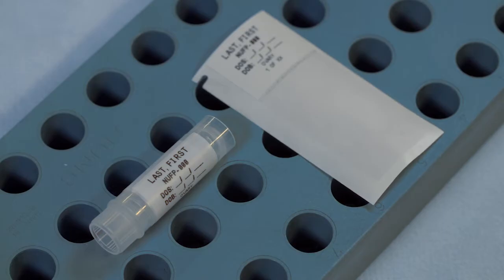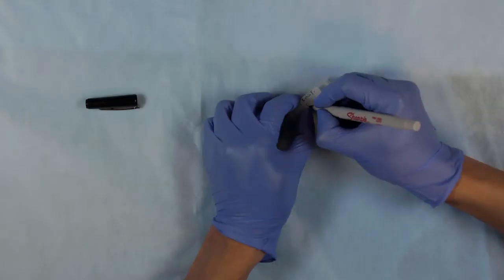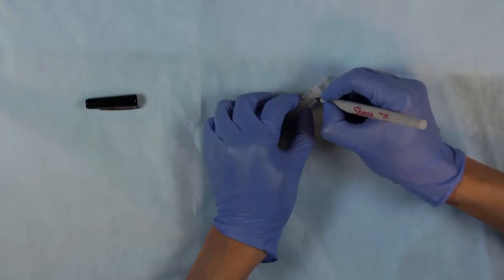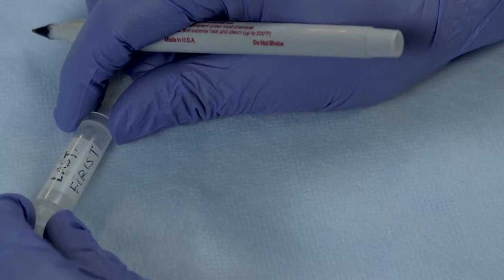Please refer to the labeling protocol in the online NPC manual. We also recommend that you label each vial with the patient's name by hand, just in case the labels were to come loose.